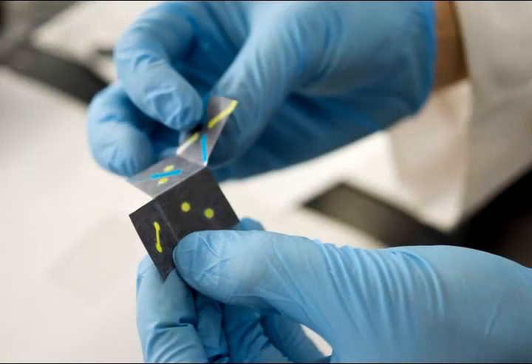And then you just unfold it, and it's like reading a pregnancy test. And in fact, it's based on some of the same principles as the pregnancy test. Blue means yes. The absence of blue means no. And that's it.